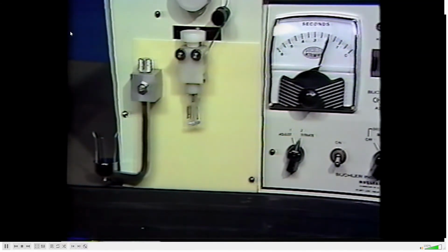The importance of chloride in the body is evidenced by its role in the chloride shift, the movement of chloride from the plasma into the cell, and vice versa, which aids in the maintenance of the acid-base balance. It is very important, therefore, for the laboratory specialist to accurately report chloride values to the physician. Careful adherence to the techniques we have outlined will ensure this accuracy.